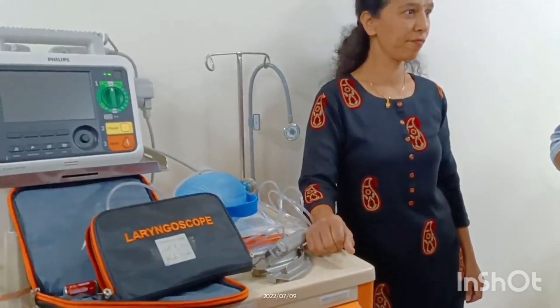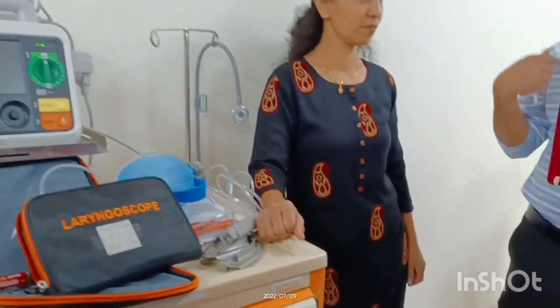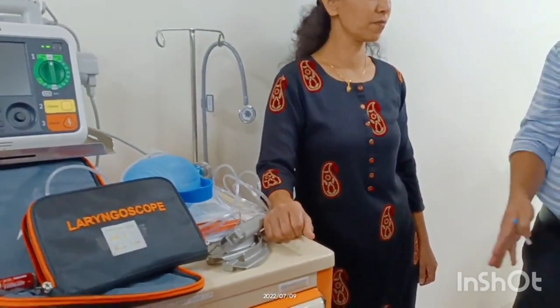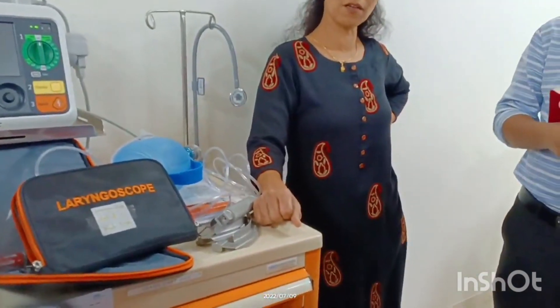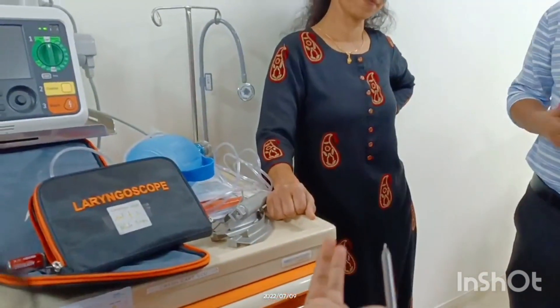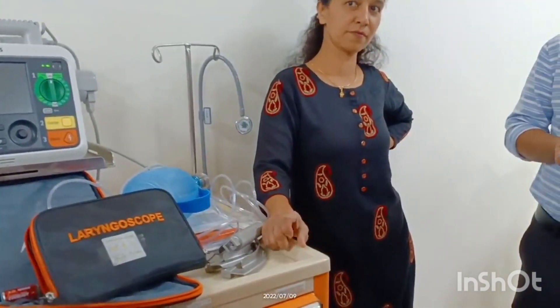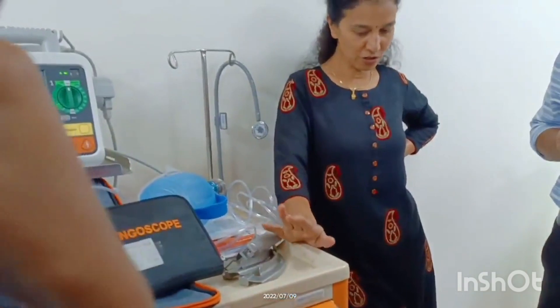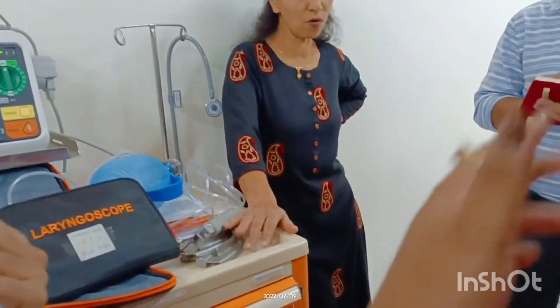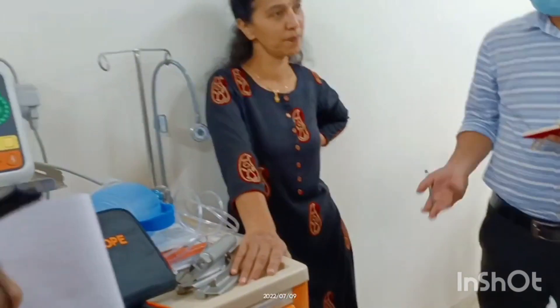For example, RTA patients — road traffic accident patients — who have difficulty breathing. The crash cart has all the equipment required for intubation. If the patient has a complete heart block, we give adrenaline after CPR. The crash cart is opened only in emergencies such as accidents and burns.